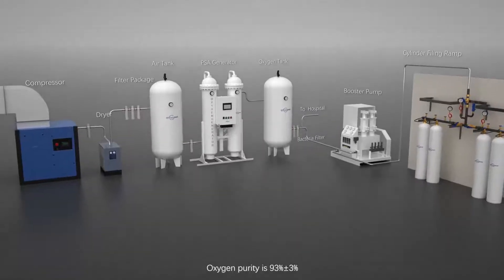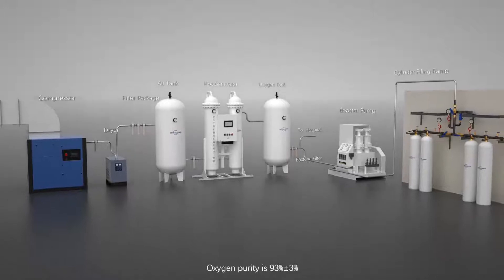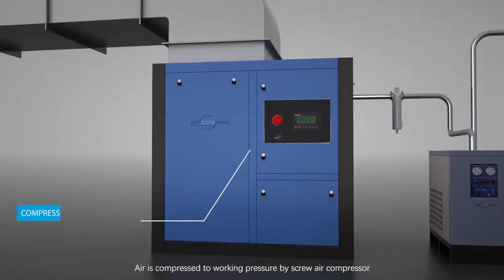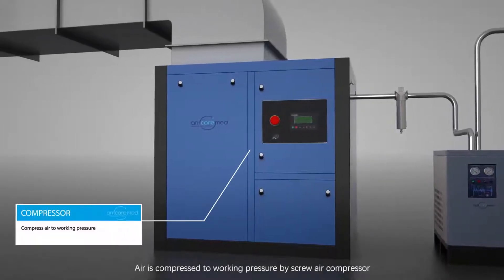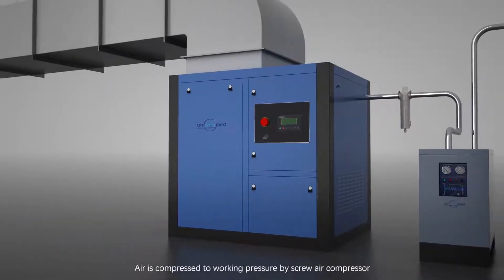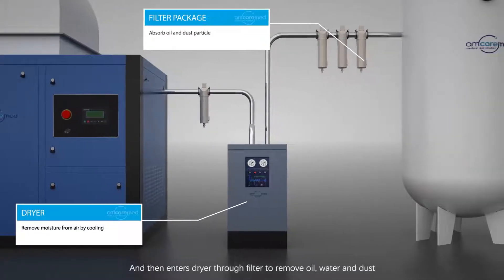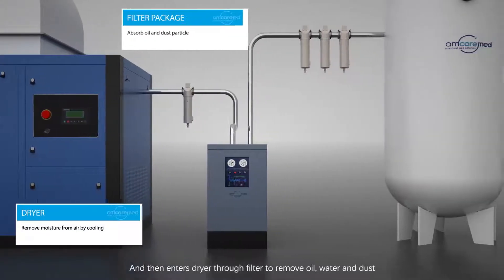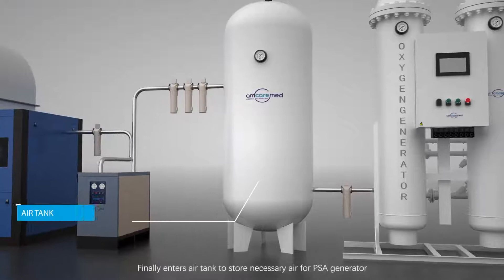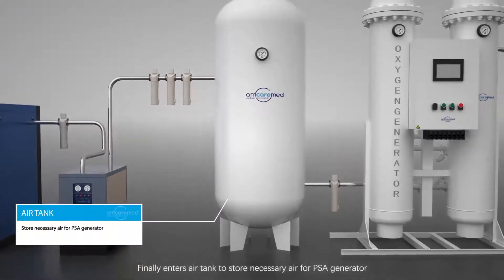Oxygen purity is 93% plus or minus 3%. Air is compressed to working pressure by a screw air compressor, then enters the dryer through a filter to remove oil, water, and dust. Finally, it enters the air tank to store the necessary air for the PSA generator.